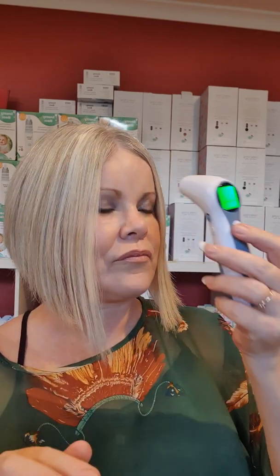I'm just going to take my temperature again to show you the consistency of measurement. Turn it on, hold it here, press the button — and there it is, 36.6. I'm heating up as I'm recording this video, as I always do! The temperature can vary between 0.1 or 0.2 of a degree as measurement goes on, but it's very reliable.